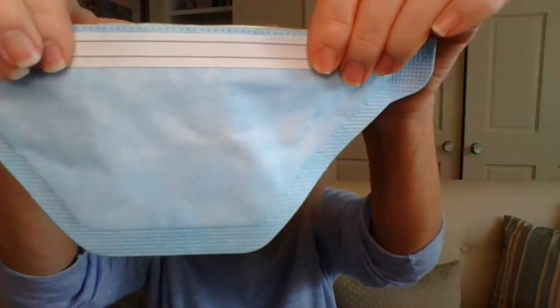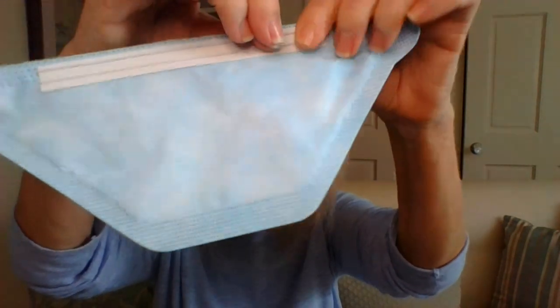This one is a blue duckbill — I haven't seen any other duckbills that I've reviewed that come in blue. I kind of like the color. This is polypropylene melt-blown spun-bound, NIOSH approved, so I don't have to get too far into the specs. It does have this interesting nosepiece — it's actually a carbon wire, a very thick, wide carbon wire. It feels almost like plastic, real smooth. I haven't seen a nosepiece like that. And just like the Gerson, it comes with what looks like one wide strap, but it turns out that these split apart into two.